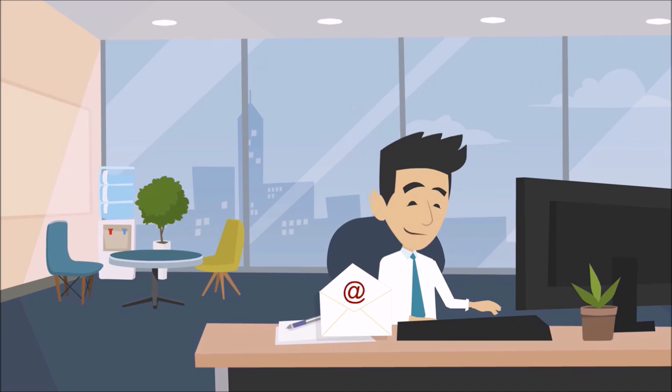And if you do need help, we'll call your chosen friends, family and neighbors until one accepts the alert. So help is always at hand, just when you need it.